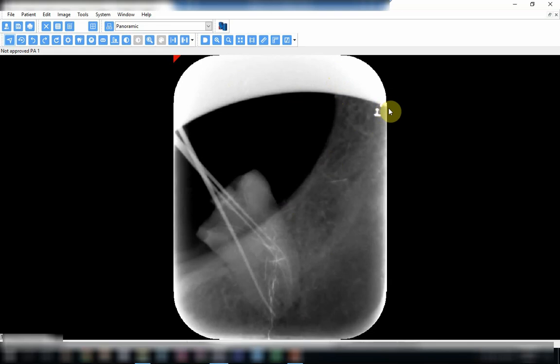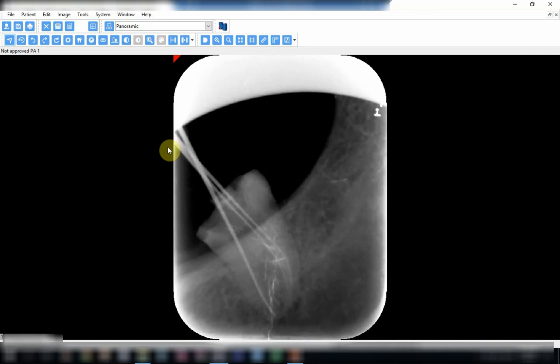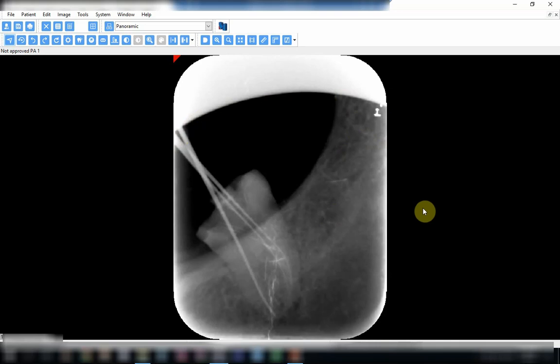As you can see from the name, it is the cut of the coverage of the cone. You will have a part that is exposed to X-ray and then a part that is not exposed. In this image, you have seen what you want, but in some instances the part that you really want to see will not be exposed to X-ray, and hence there will be no image.